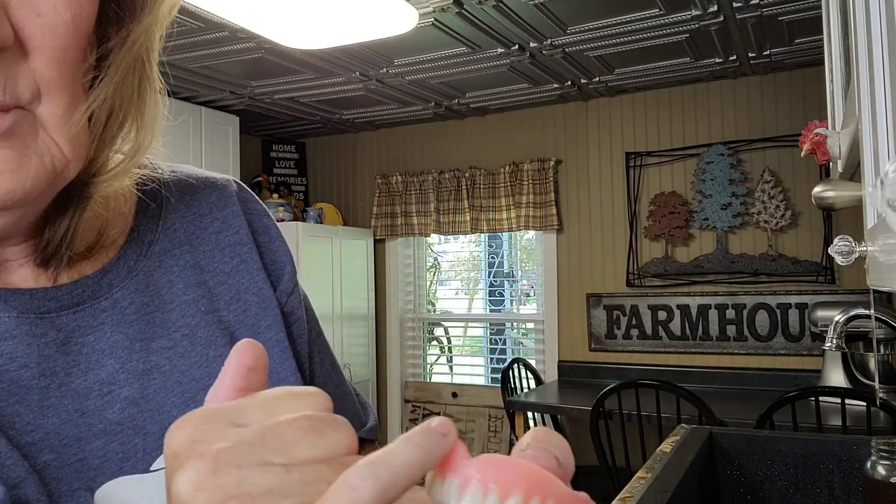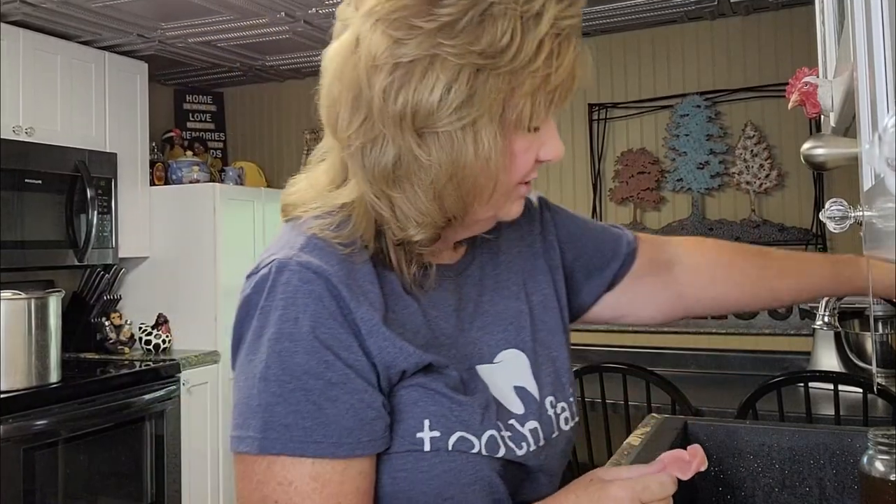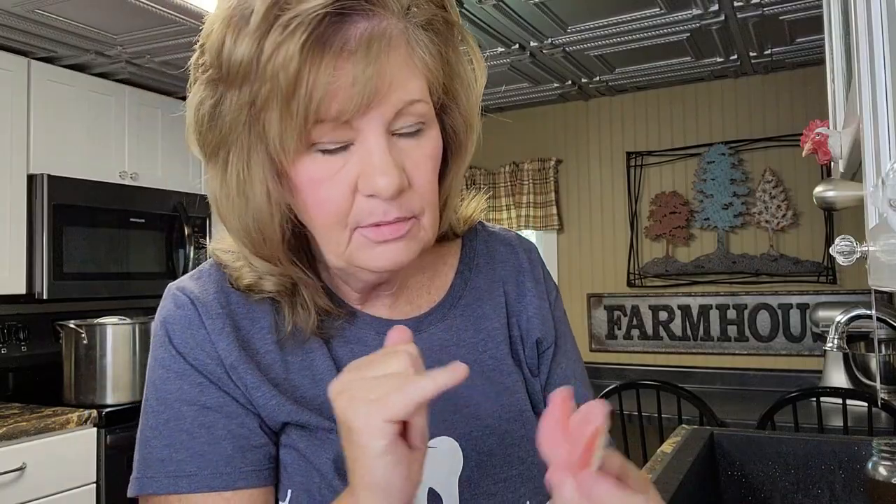Hopefully that'll work. And you know, this is too much — this is just too much. So we're going to take care of that. I rinse them off after I do this because it leaves powder. These are my temporary dentures — these are not my actual ones that I'm going to have for life. Perfect. That little tiny bit of filing up here took care of what it needed to. Now let me put my bottom teeth in before I move on.